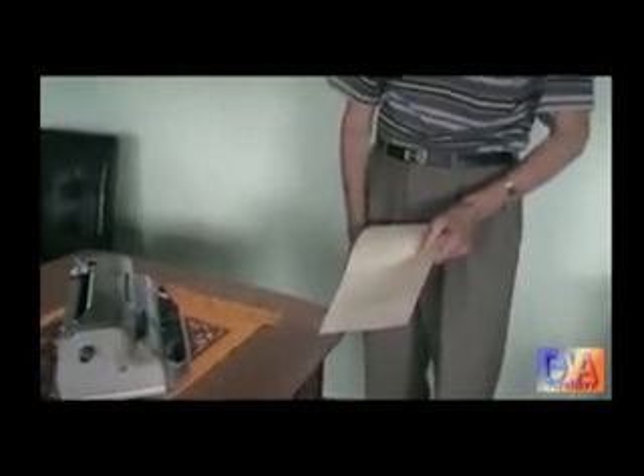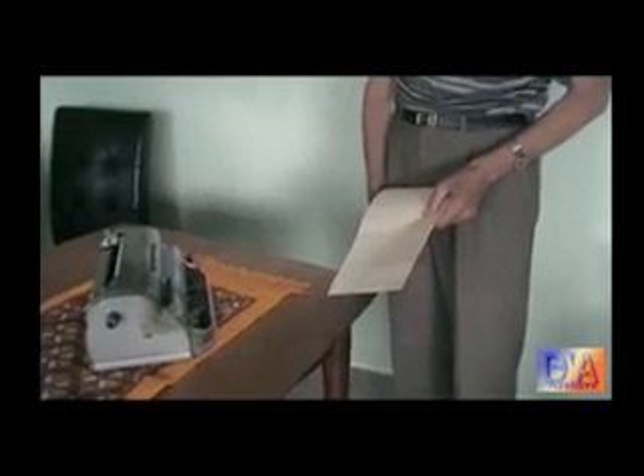John's going to put this — we don't need any power here, by the way. They're all just mechanical devices. Marvellous. No power or batteries or anything.